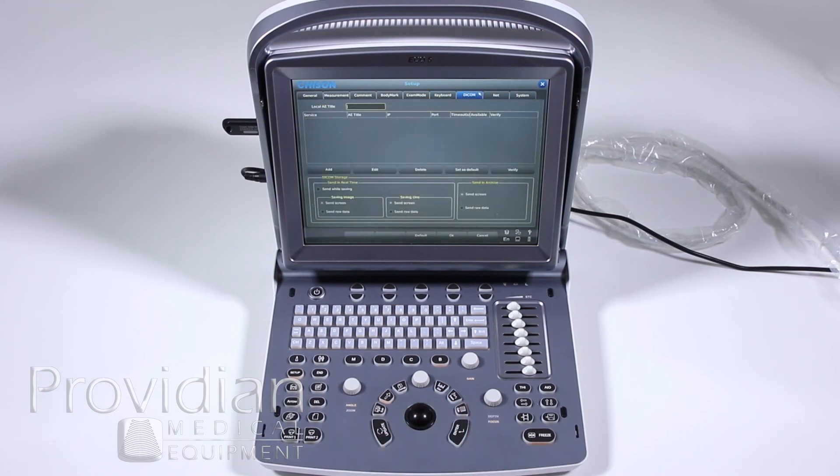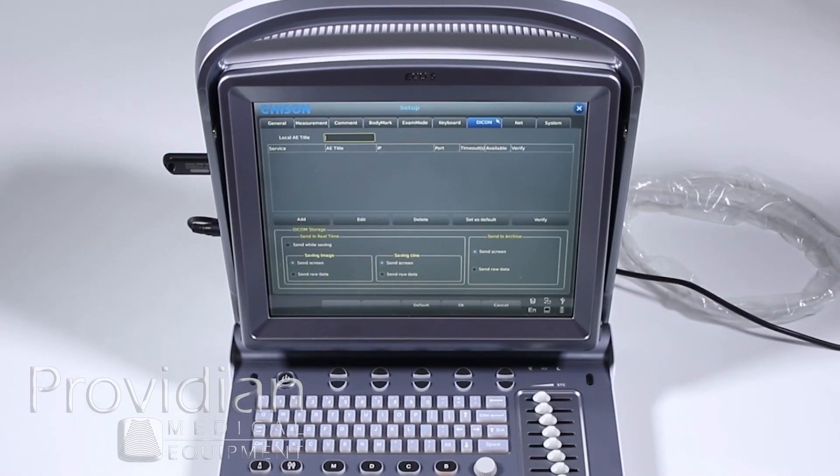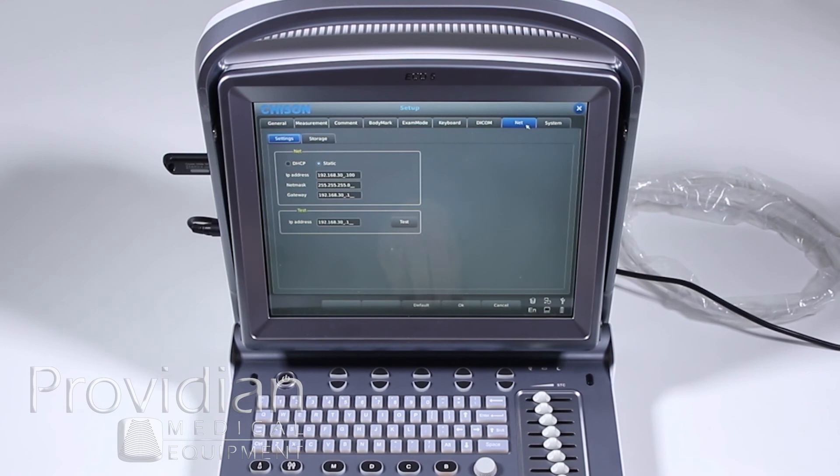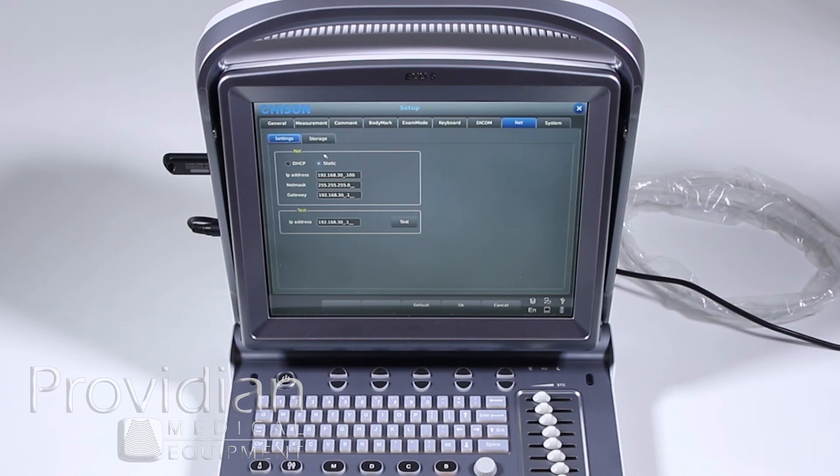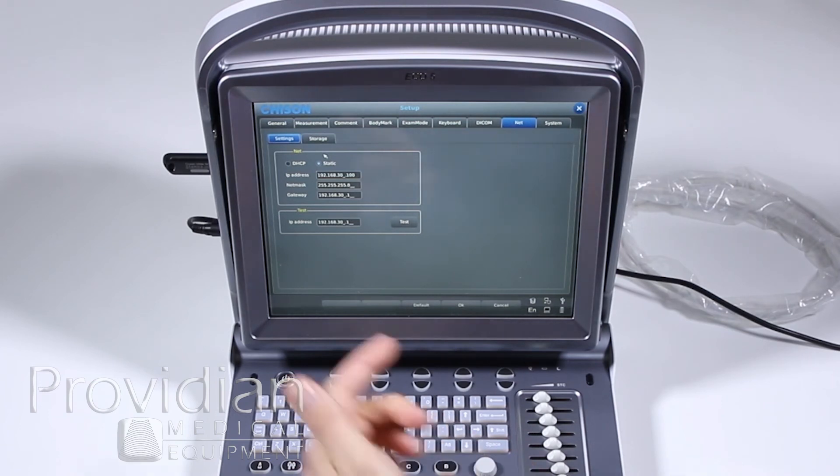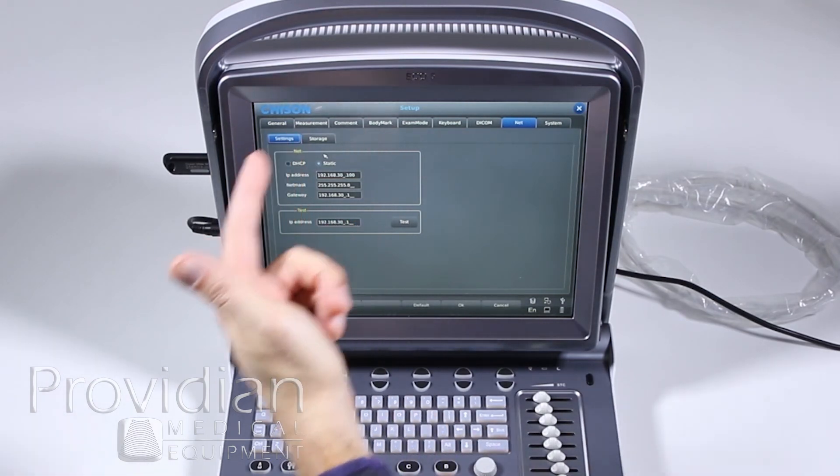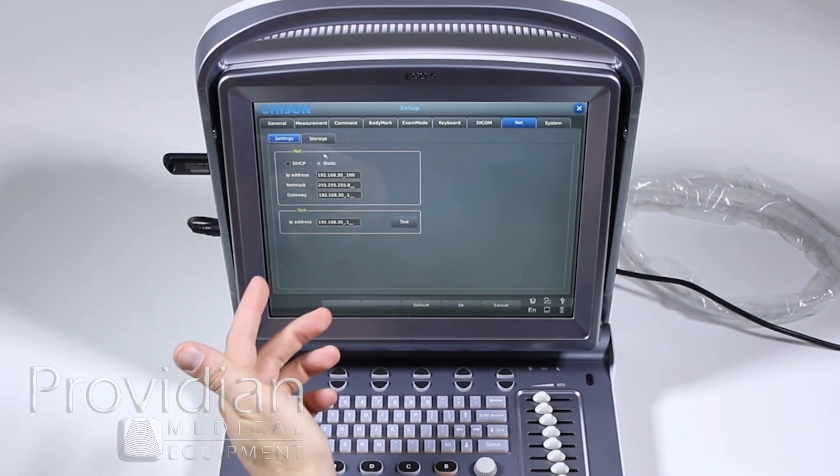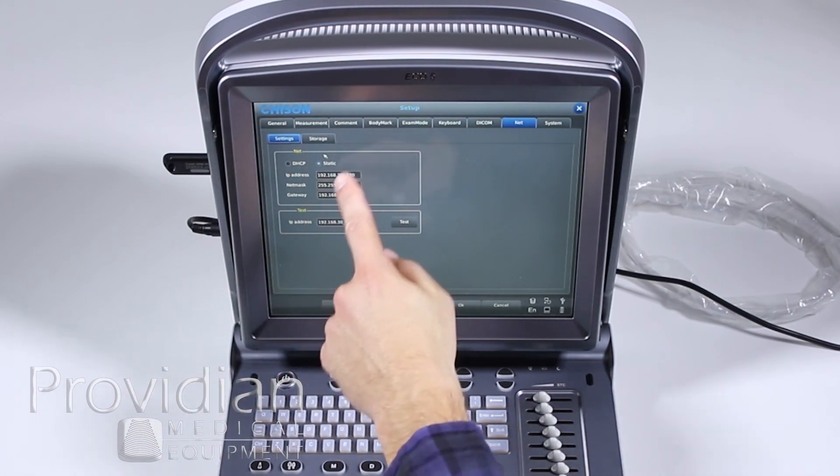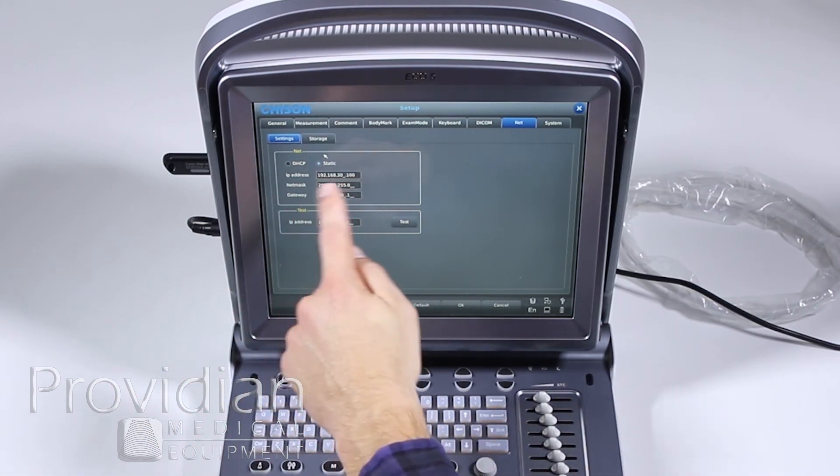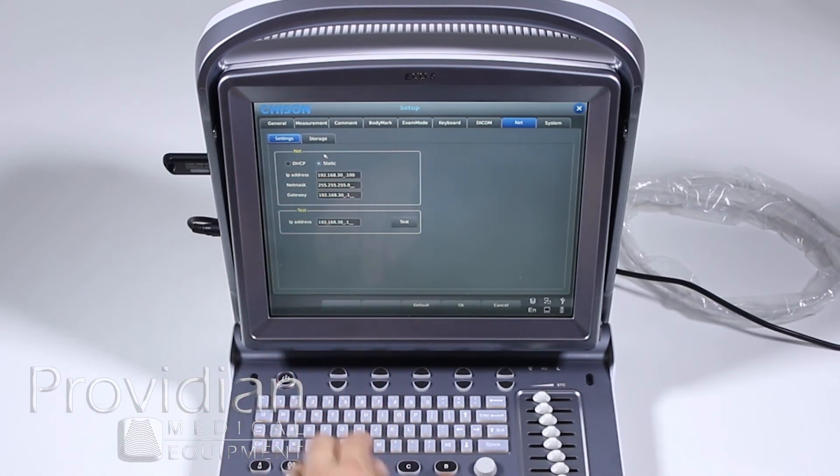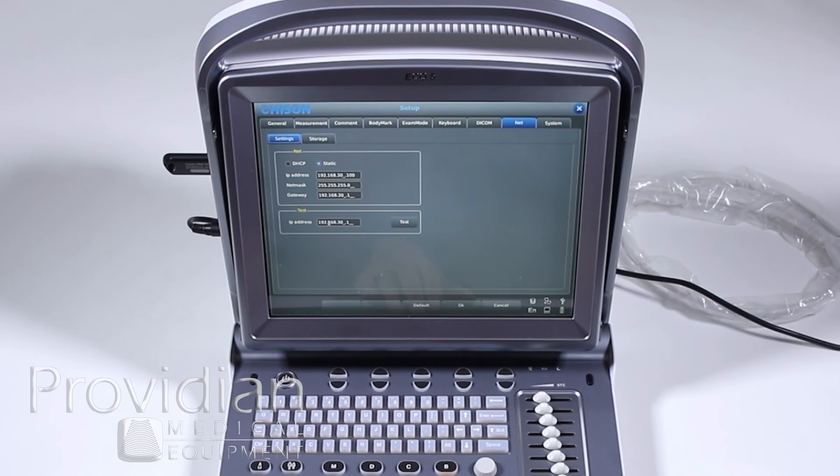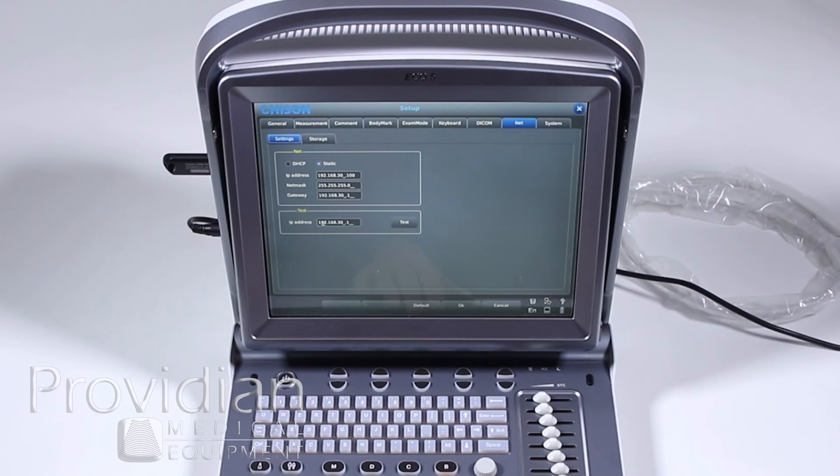DICOM setup. Before you do this, you're first going to want to set up your network. And this is stuff that you have to get through your IT professional and also the person running the DICOM server. They will tell you whether you're on DHCP or if you want a static IP address and they'll give you these parameters here. They can give you an IP address, which is what's called pinging, where they say I want to make sure that your machine is on the network. They'll give you something to plug in here and you'll click test and it'll tell you if it's successful or not.